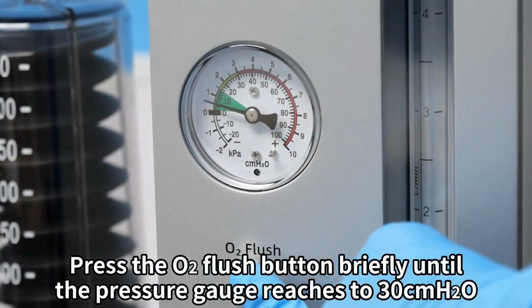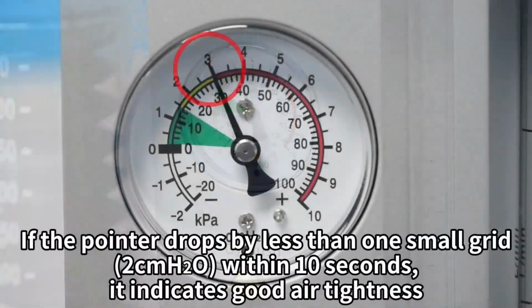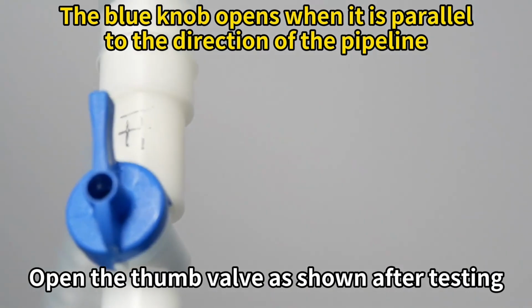Press the oxygen flush button briefly until the pressure gauge reaches 30 centimeters of water pressure. If the pointer drops by less than one small grid within 10 seconds, it indicates good air tightness. Open the thumb valve as shown after testing.